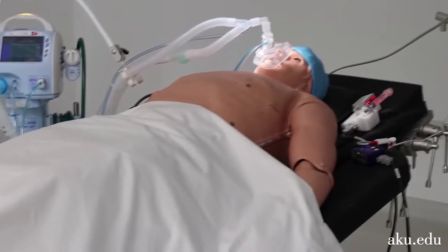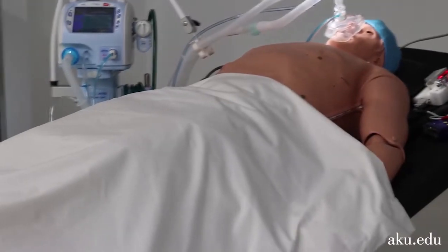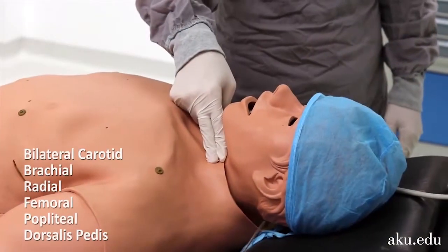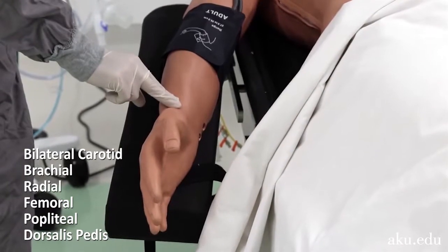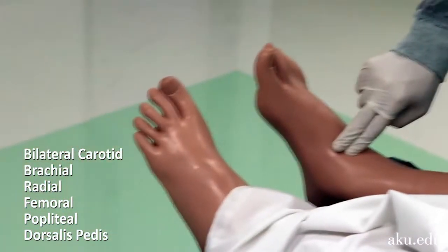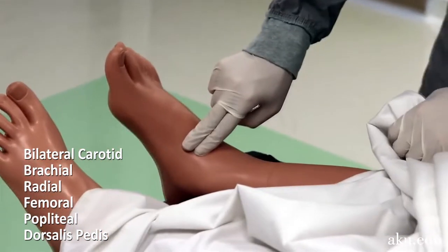It has palpable pulses at various vital positions, such as bilateral carotid, brachial, radial, femoral, popliteal, and dorsalis pedis.